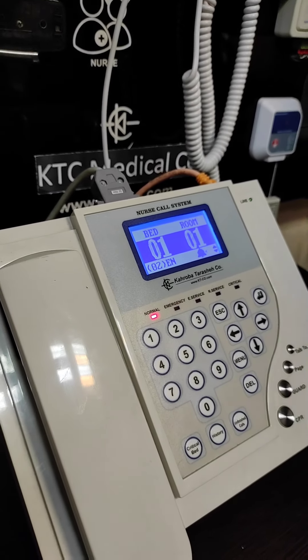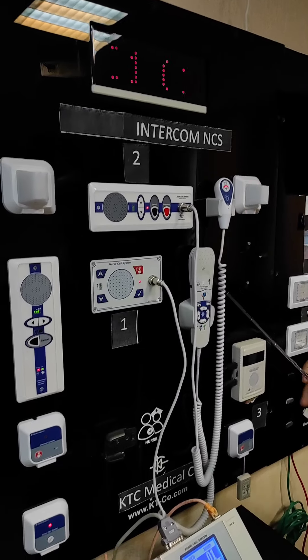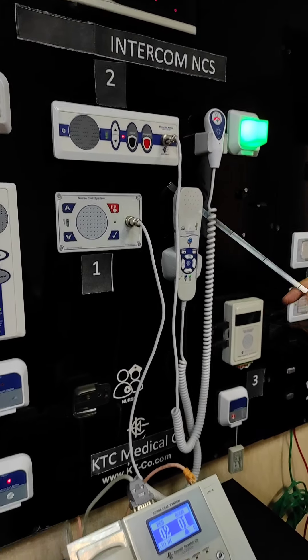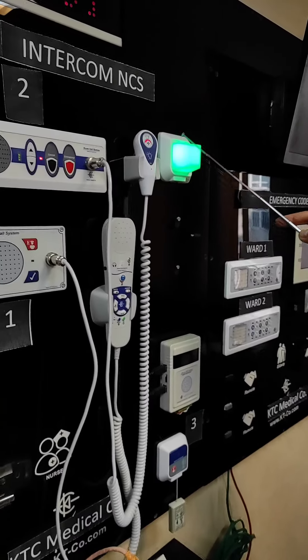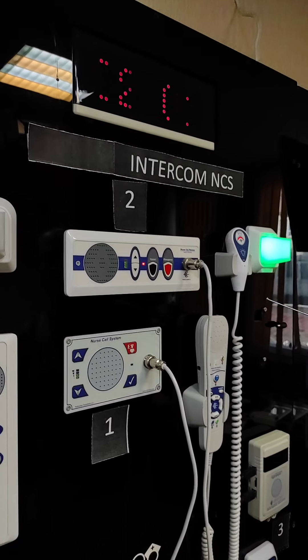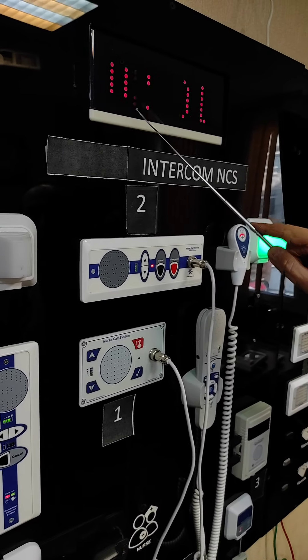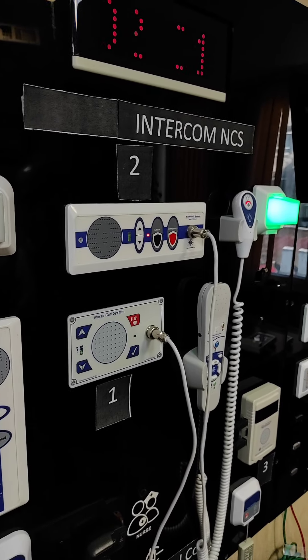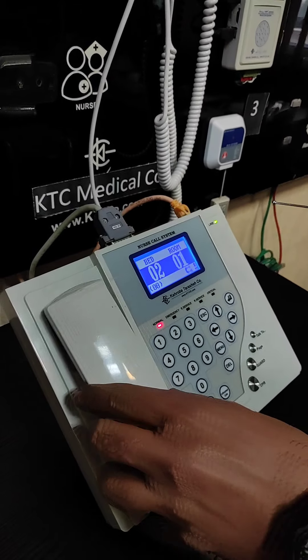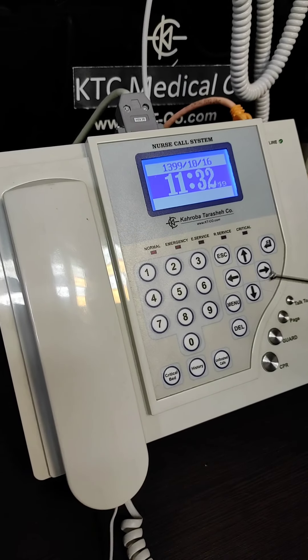The nurse should go to room number one, bed number one, as shown everywhere. Imagine the staff come, do their job, and press the presence button. After this is done, the over-door corridor status light changes to green again, meaning the emergency is handled. The display again shows room number one, bed number two, which is the room initiating a normal call. We then query that call — and after querying, it disappears from the system, meaning the call has been handled.